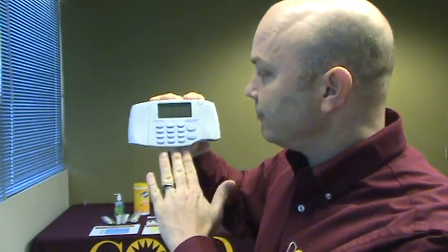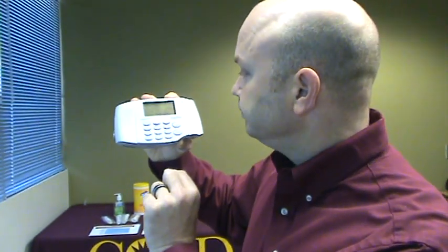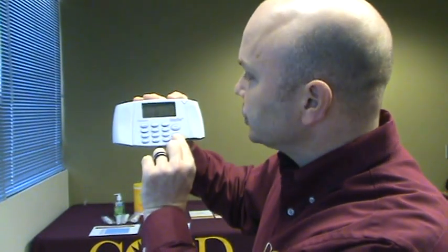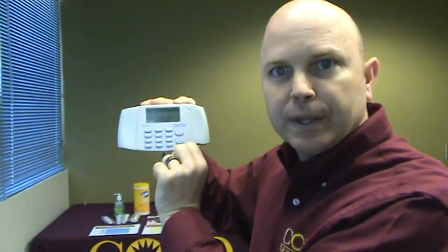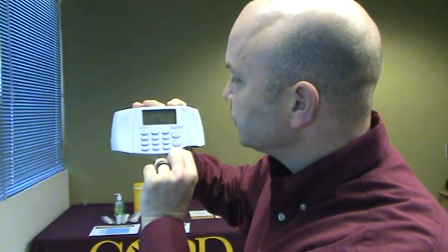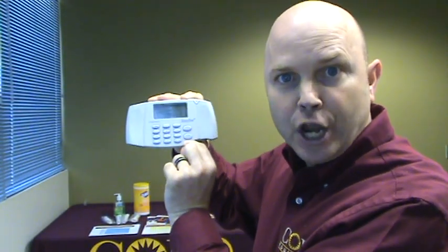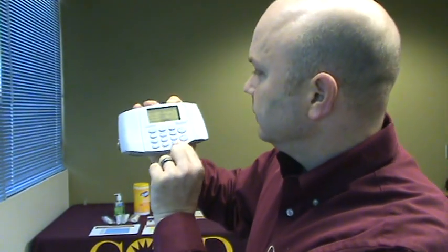For ethnicity, we ask the person to self-identify. The machine can calculate for Caucasian, African-American, Asian, or Mexican-American — choose the correct category. For gender, select male or female. Smoking status will be no, yes, or former.